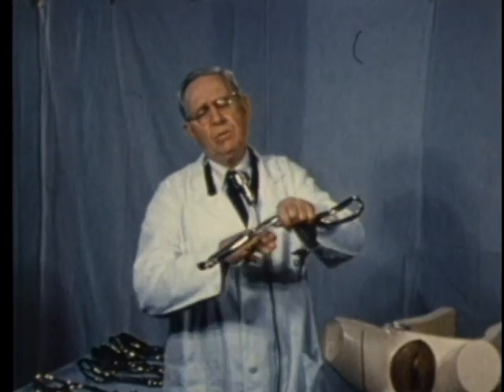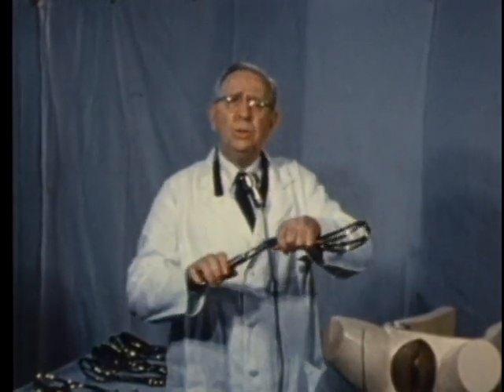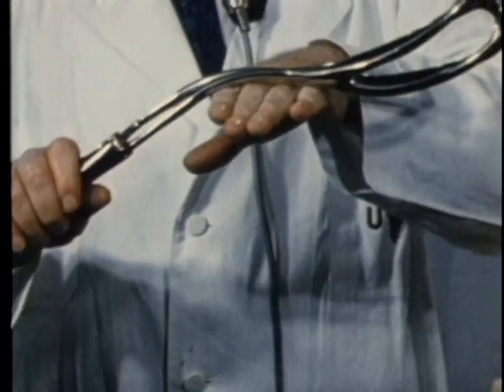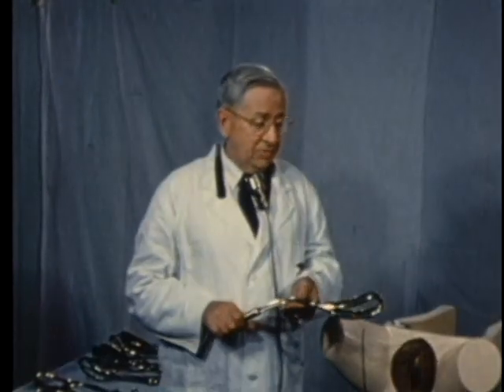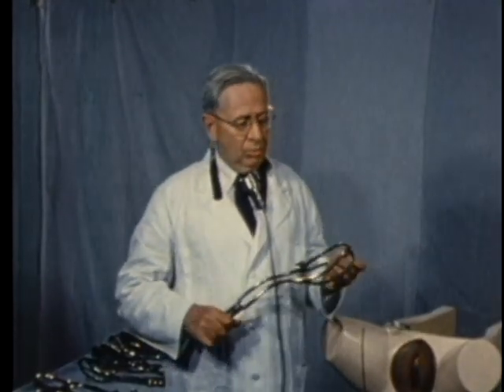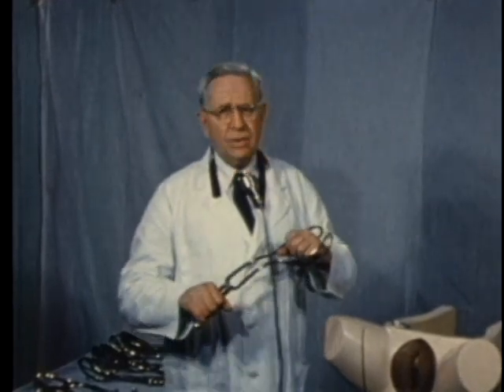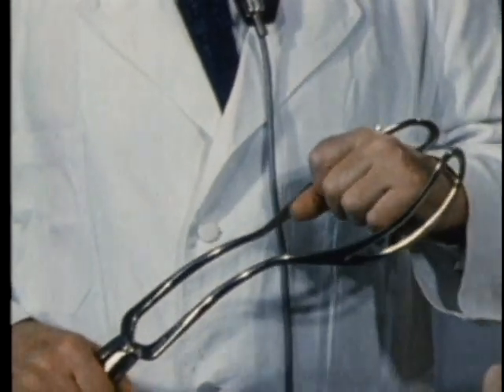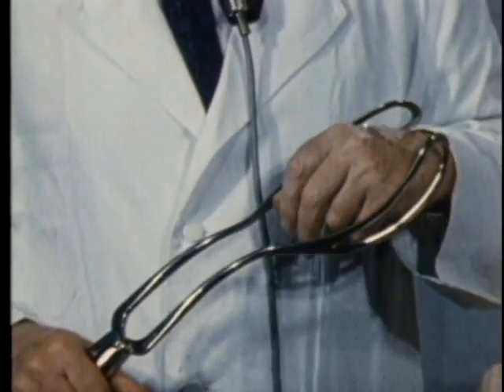The backward bend of the handles and the adjacent portion of the shanks, lowering them to a lower plane, gives axis traction. The disadvantages are few — mainly, because of the flexibility, the blades may slip on a large head, especially if one does not have an accurate application.